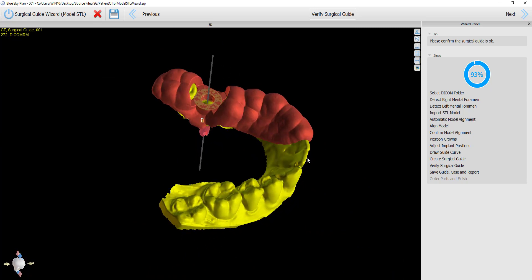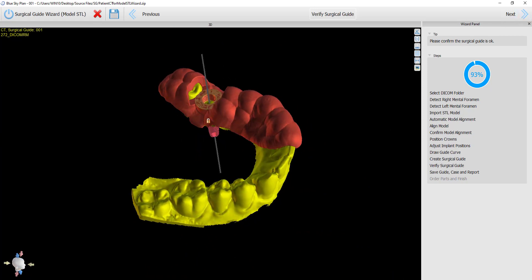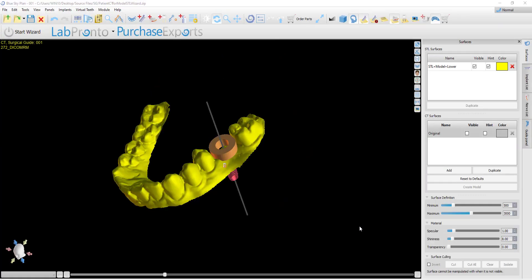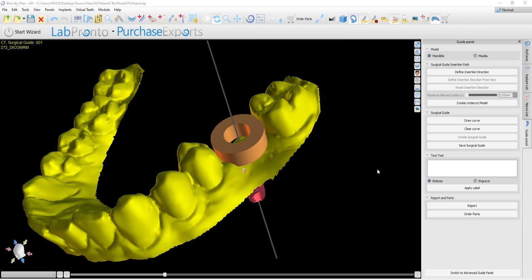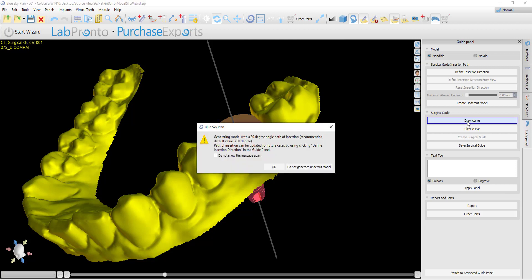The user can now proceed and finish the wizard process flow. Now let's take a look at the process in normal and advanced. The process is very much similar to the wizard when creating a surgical guide for a user that does not want to change the path of insertion. The user, as usual, clicks on Draw Curve, and the software presents a message saying that it is generating a model with a 30-degree angle for path of insertion. This is simply a notification that a model with undercuts removed is being generated.